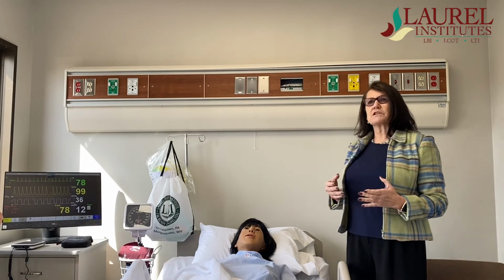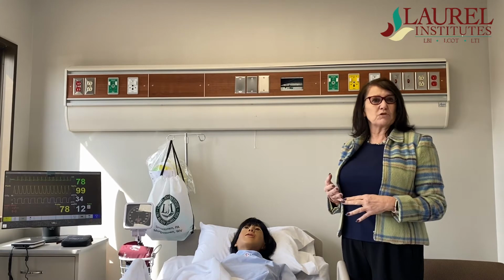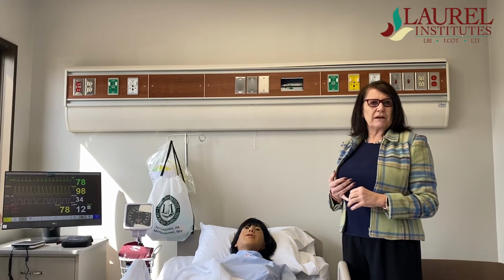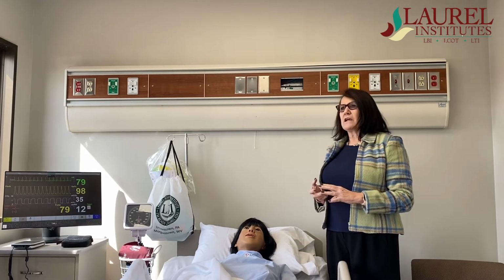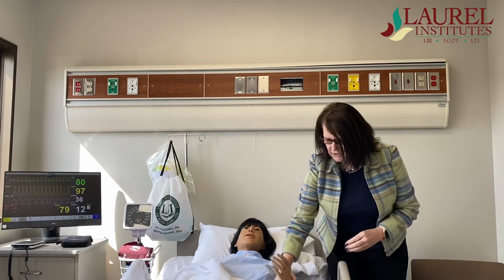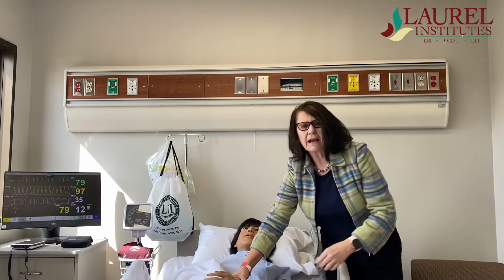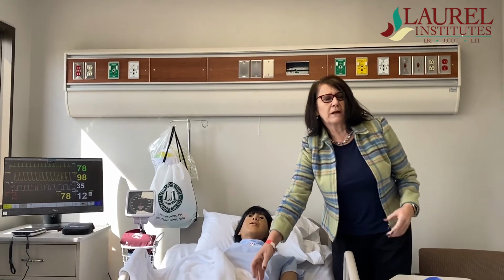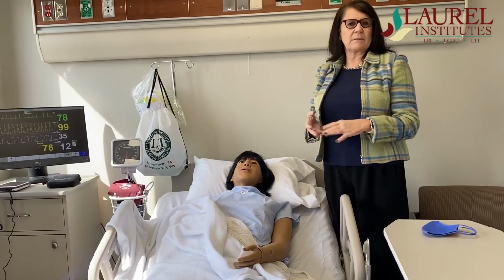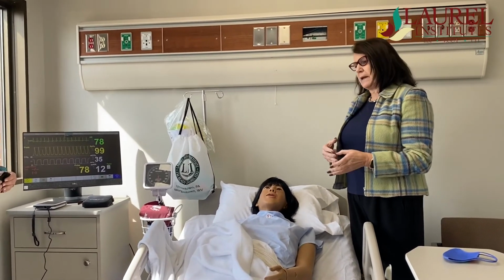But it also gives them experiences that students won't be able to get in the hospital. We can simulate hanging blood. Students don't get to hang blood in the hospital. We can do that. We can titrate medications on her, put an IV in her. She has spots on her arm where you can put an IV, put it across her chest, and actually put fluids through it. So then we can titrate meds that they wouldn't be able to do, some insulin, some heparin, some pressors, things to control her blood pressure, and be able to do that.